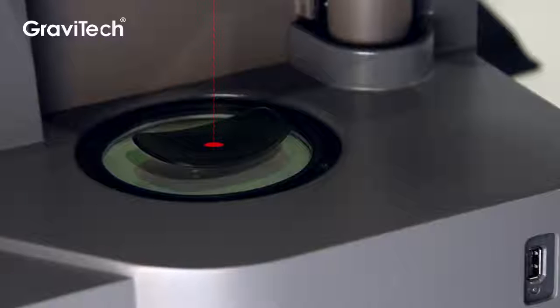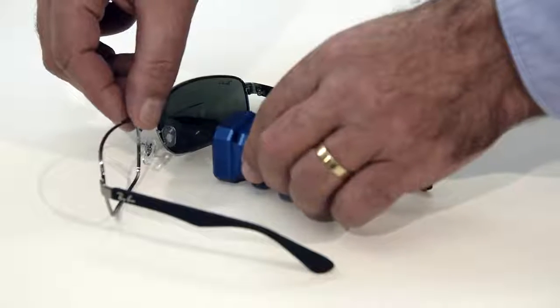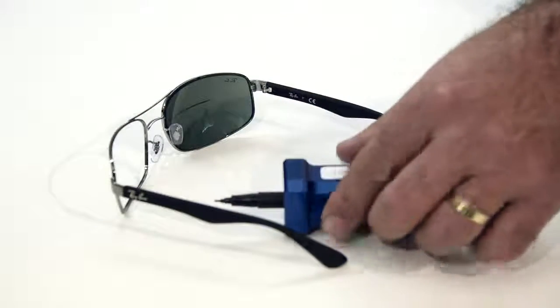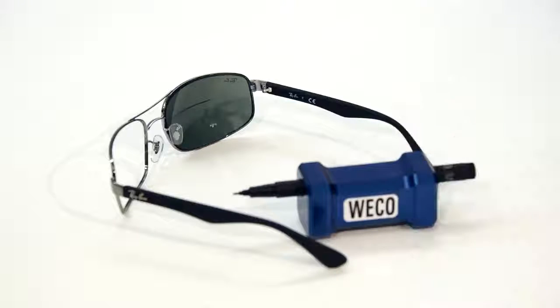which is 100% reproducible and known. For the axis, we use our newly designed tool that will place a perfect frame axis on the rear side of the demo lens, no matter if it is small, medium, or large.